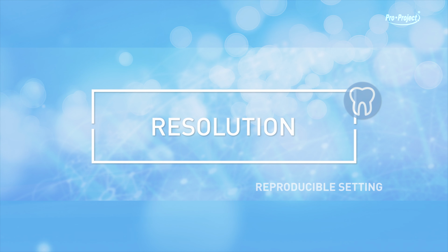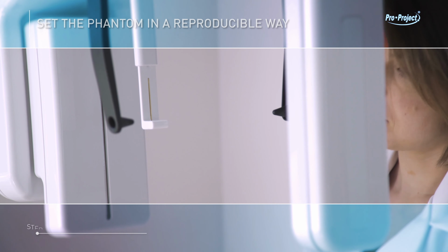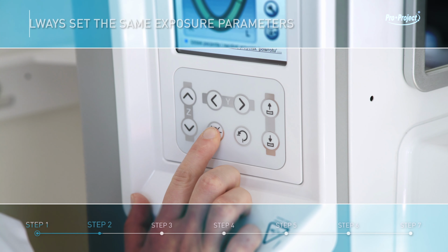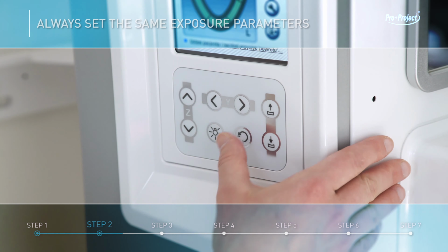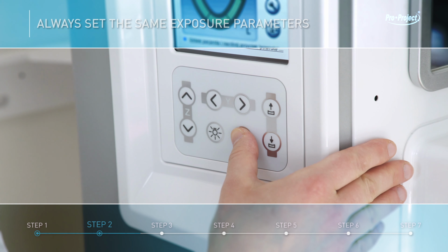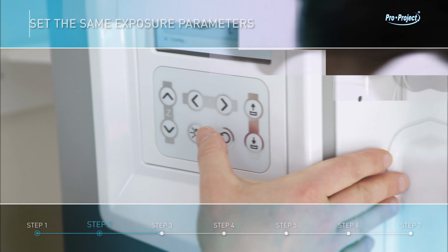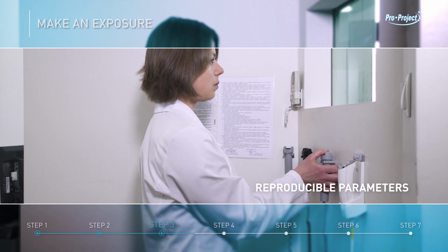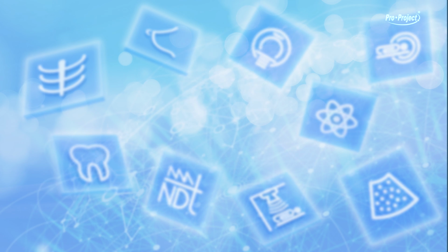Resolution, reproducible setting. Set the Phantom in a reproducible way. Always set the same exposure parameters. Make an exposure.